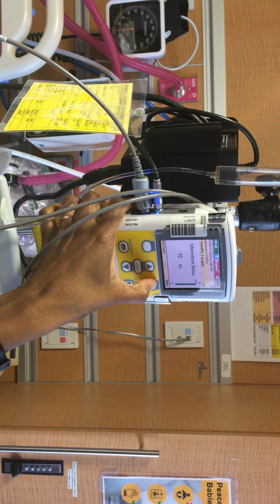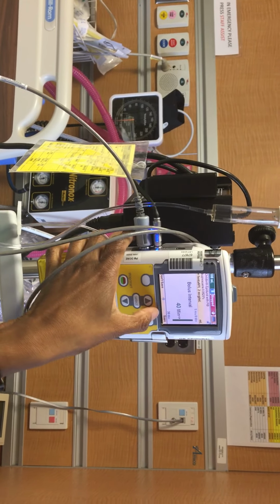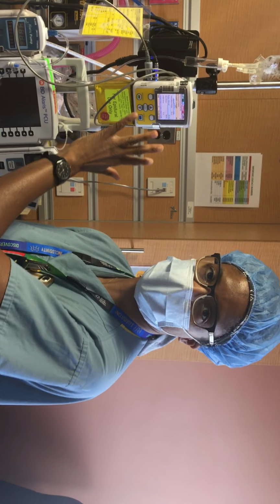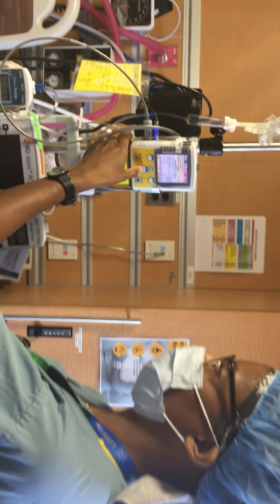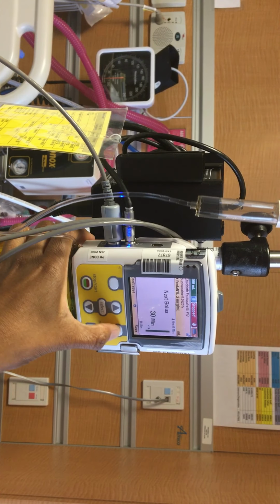So you would save that number, and then it asks next the bolus interval. How often do you want the client to get the dosage of medication? In this case, it's every 40 minutes. And then you would hit save, and then when is the next bolus due? So if there's been a loading dose, it's 40 minutes from that. So if you're doing this setup 10 minutes after the loading dose was given, the next dose would actually be in 30 minutes. So you would actually change that number from 40 minutes to 30 minutes.